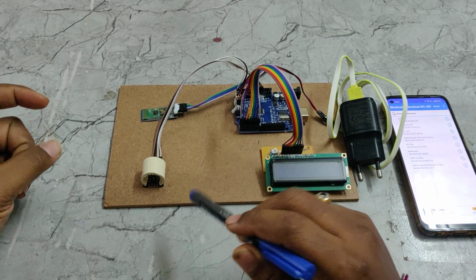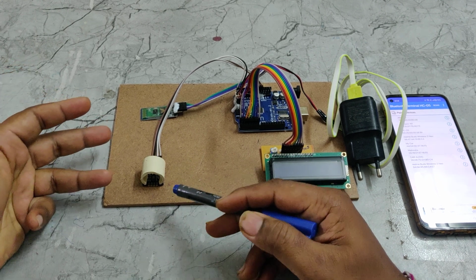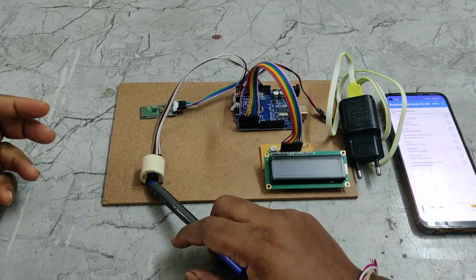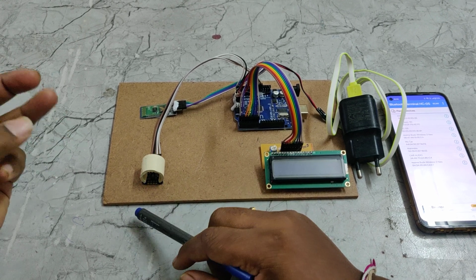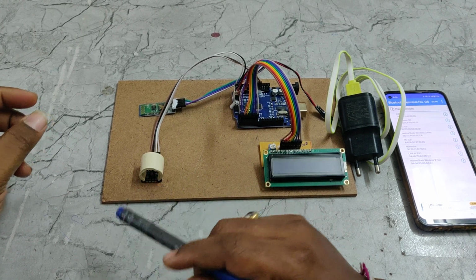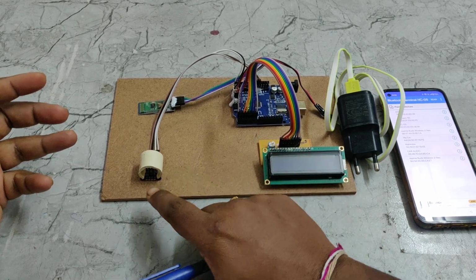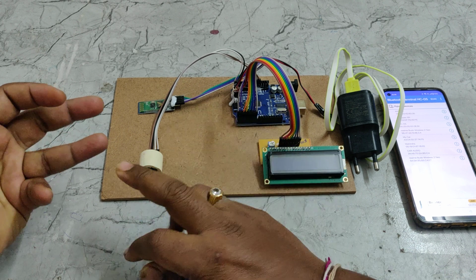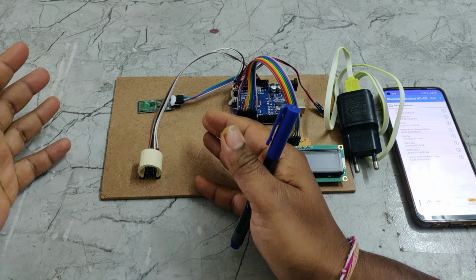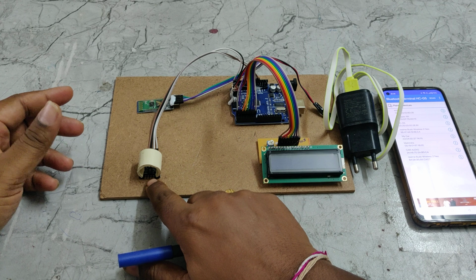To identify the blood density of a particular person through the finger, with the non-invasive method, we are going to use an IR sensor and an LED which will emit red light. The IR sensor is used to detect the finger presence, and the red light along with the photodiode, nothing but the LDR sensor, will be used to identify the reflected red waves. When the red LED emits the red light, it passes through the finger, and the blood cells reflect those red LED lights, which are received by the LDR sensor.